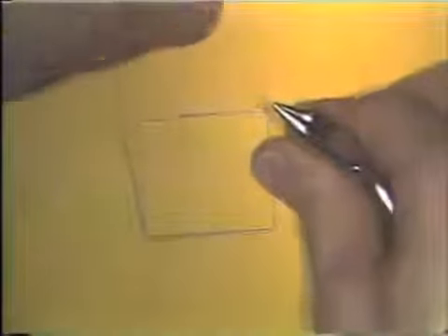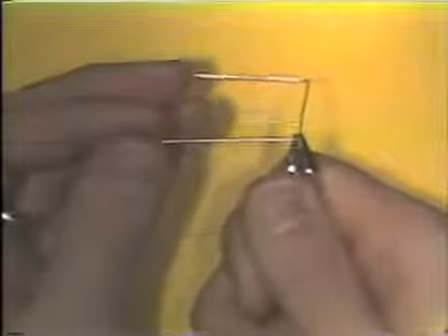Okay, the bend was not sharp enough yet, so we'll put some more bend into it. Each time you make a bend in a wire, you have to be aware of the plane and space. In other words, you have to orient the wire correctly in the beaks of the plier.